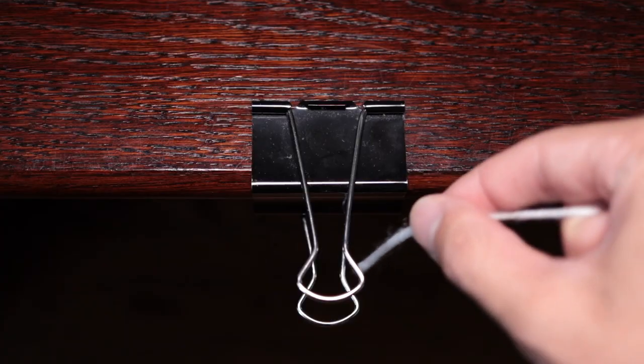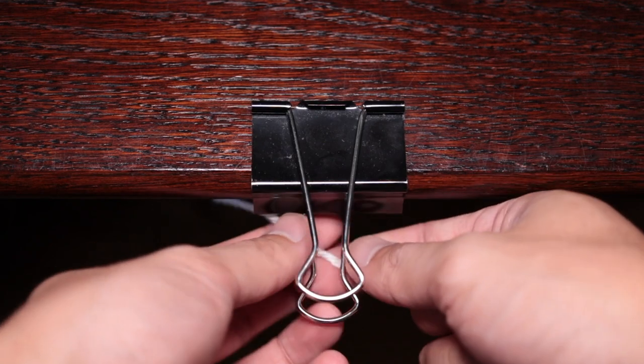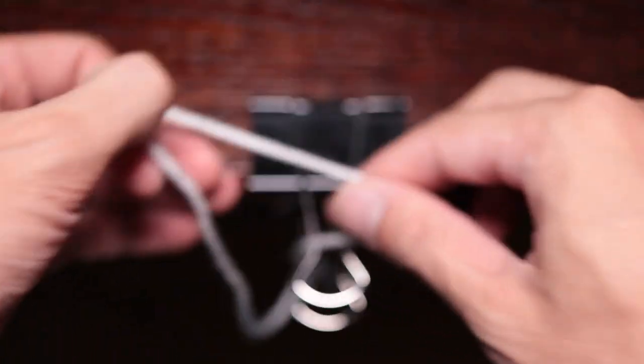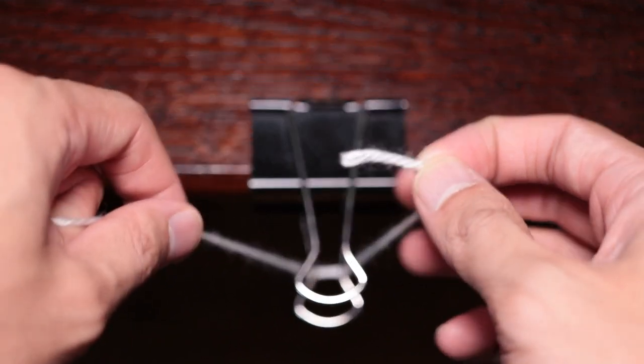First, simulate passing the suture through the wound so that in your mind you know which is the free end and which is the needle end. Both hands need to be free to perform this knot.